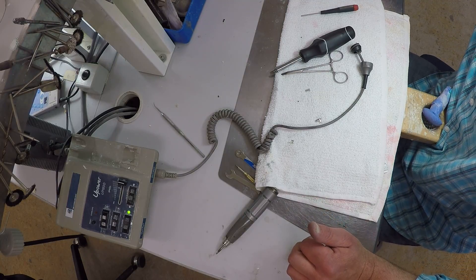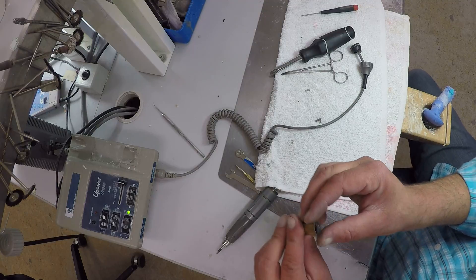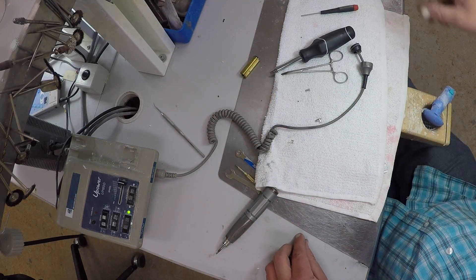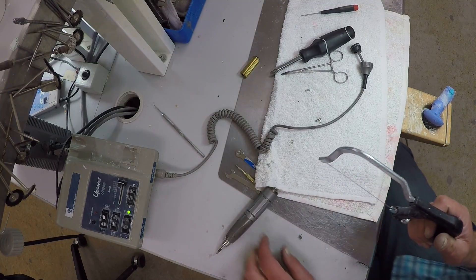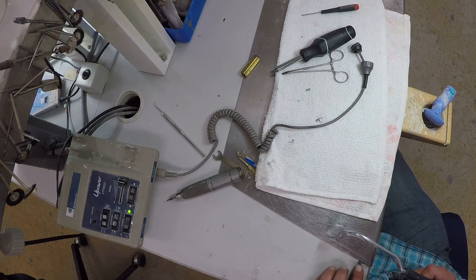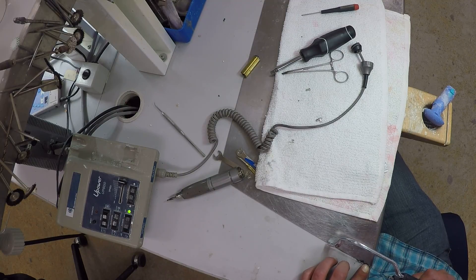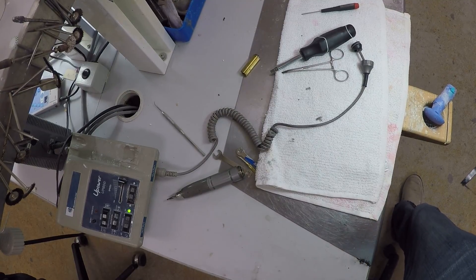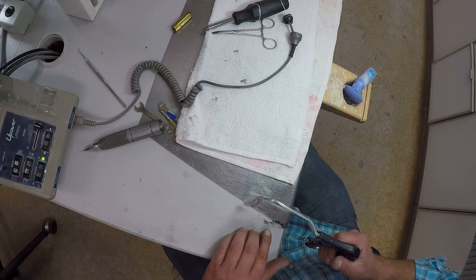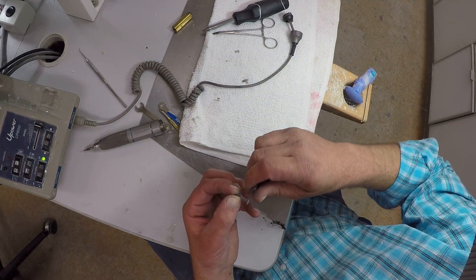I am going to make my own one here, using a housing from a different unit. Please ignore the background noise — we're in a dental lab here. I've been doing my own piece of graphite. I just want to carve this by hand, making it 2x2 mm wide.